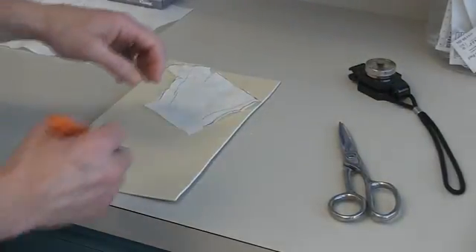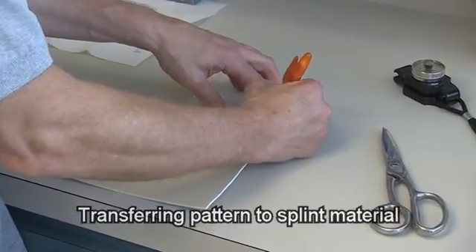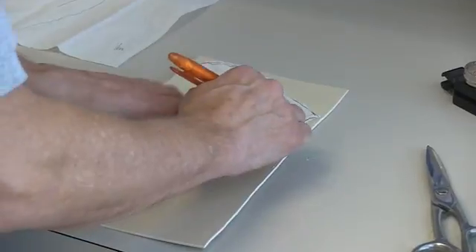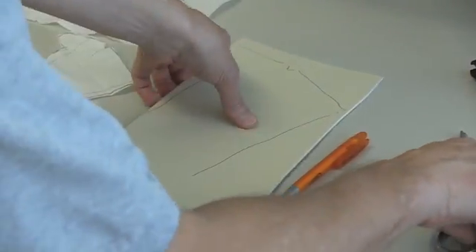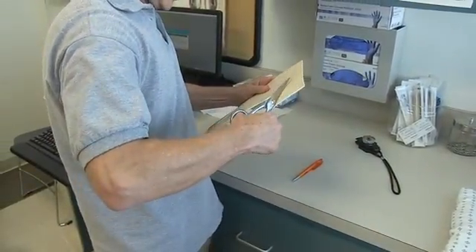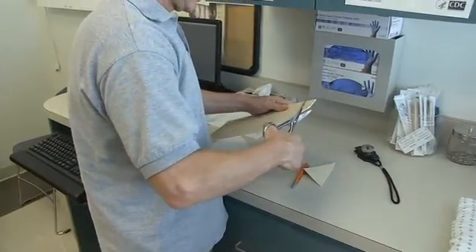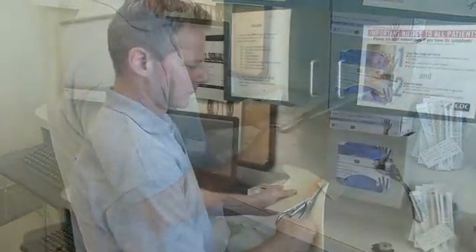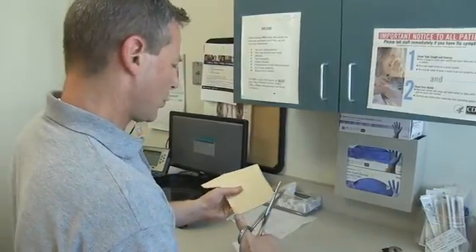Now we're going to draw the splint pattern onto the splinting material. Now we're going to cut it out and place it into the warm water.